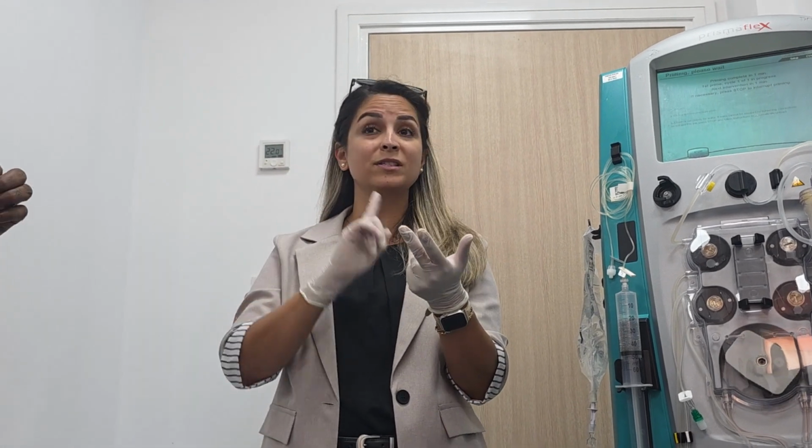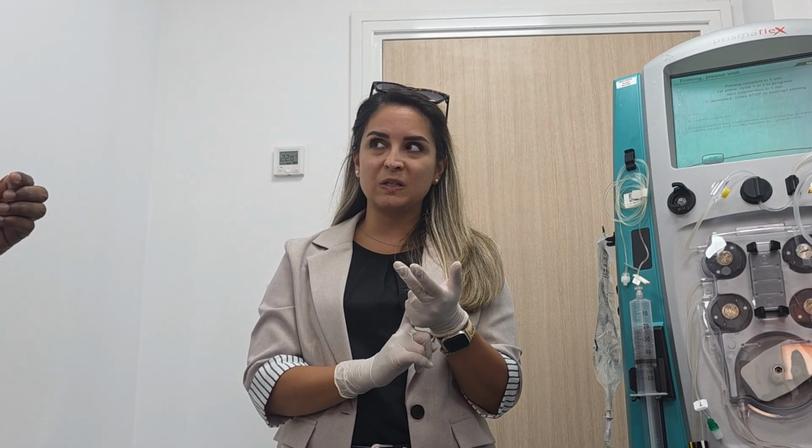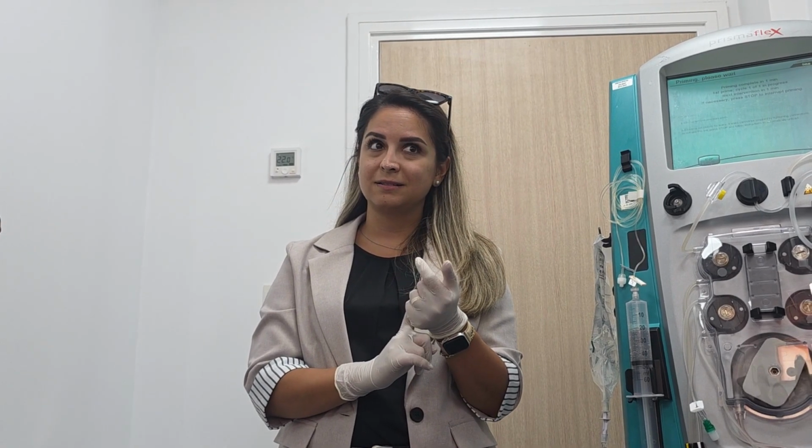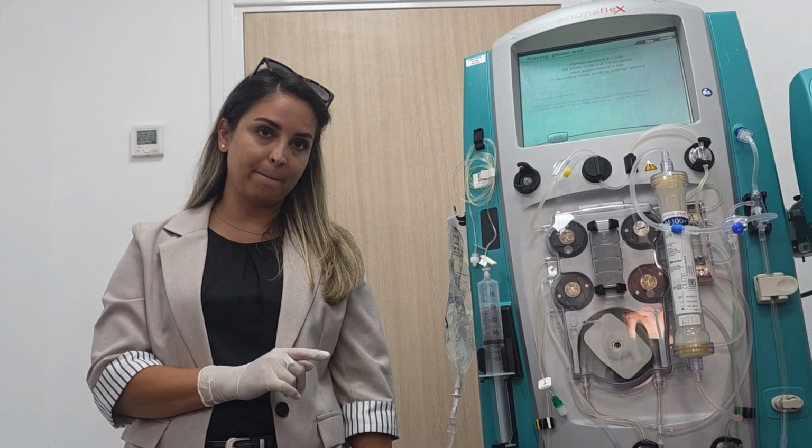My last question is, if you have a patient without an arterial line and without a central line, how are you taking the blood samples? Sometimes the doctors will put in a midline. Then in our case you can take the sample from here. That is the last option, because it's not 100% accurate. So we need to talk to our doctors to have an arterial line or a central line.